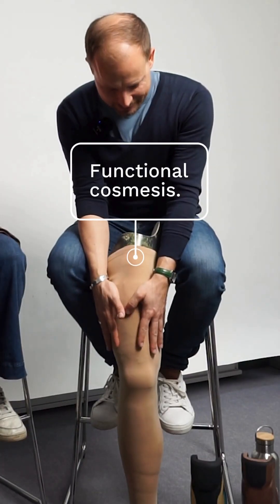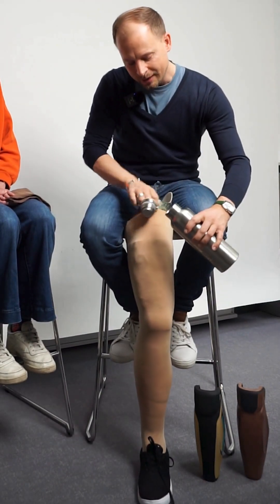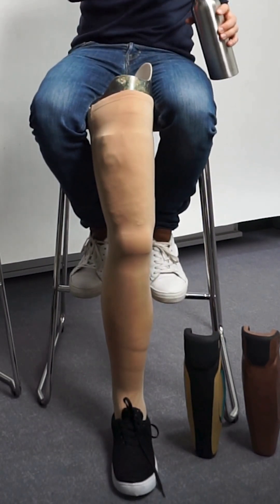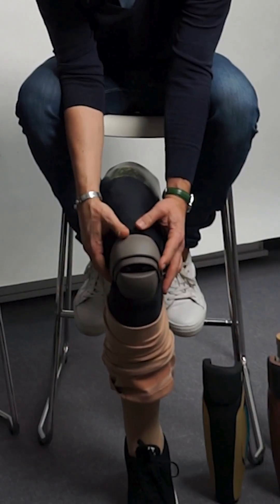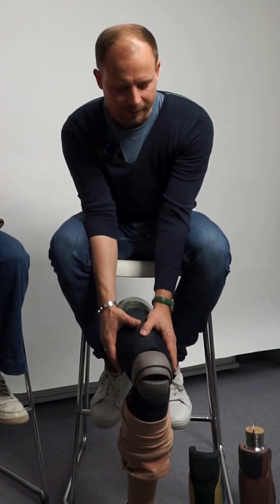For instance, the cosmesis. We developed a textile that is hydrophobic, so in case something is spilled on you, it just spills off. There's another hidden feature called contouring — it makes shades and it looks more natural and slim. If you bend your knee, this kneecap follows the shape of your knee, and this is very unique for most cosmesis.